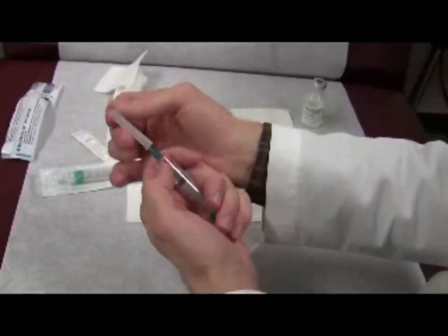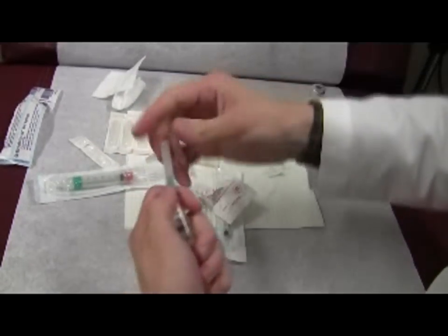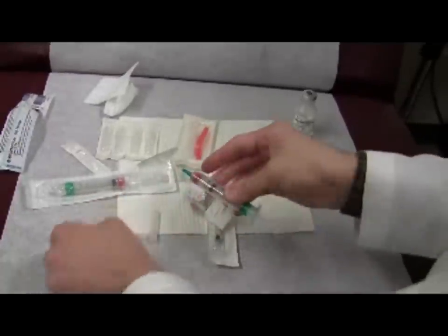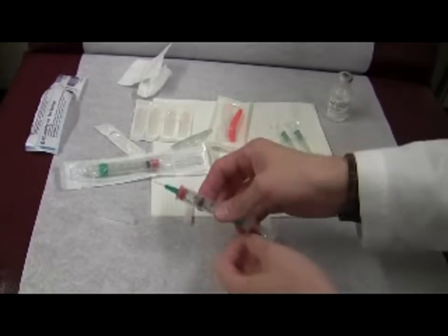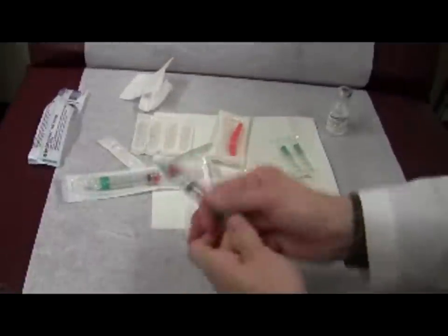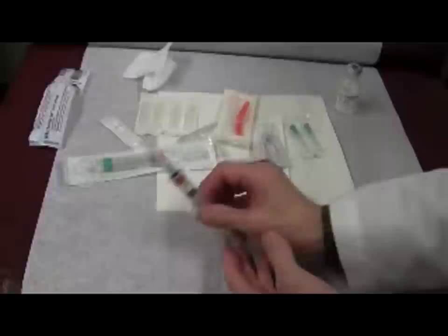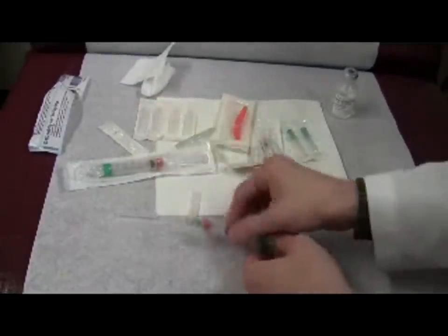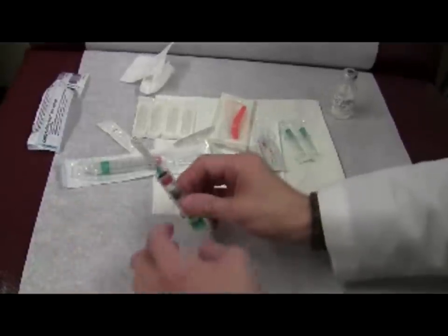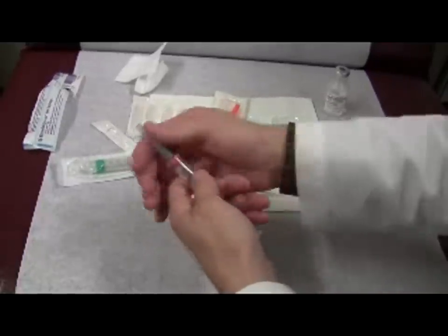If you're careful that it's on, you've done the important slow part — now you can move quickly again. Make sure you only handle the cap and the needle when the cap is at least halfway onto the needle. If it was injected into someone, you actually activate the safety mechanism and dispose of the needle. But if for some reason you absolutely have to recap, make sure it's at least halfway on before you start touching it.